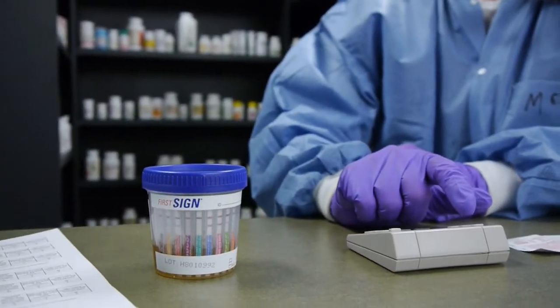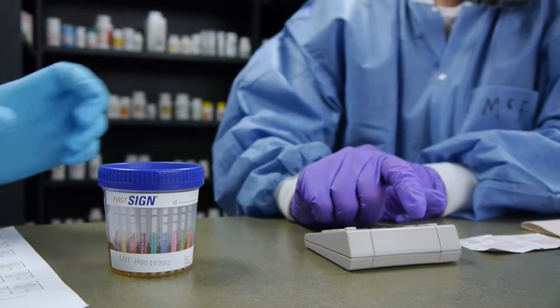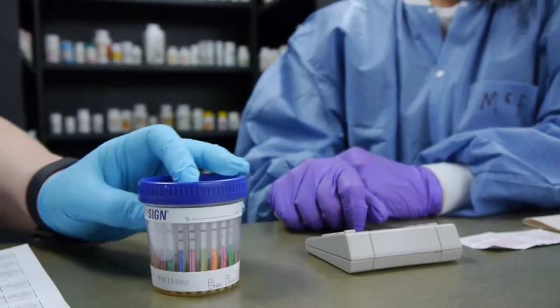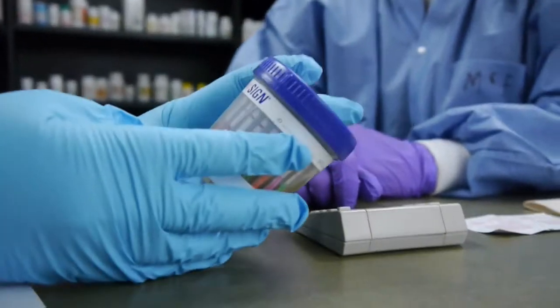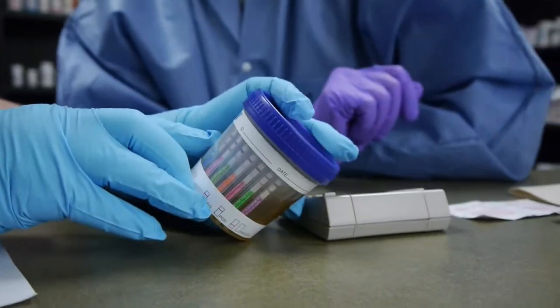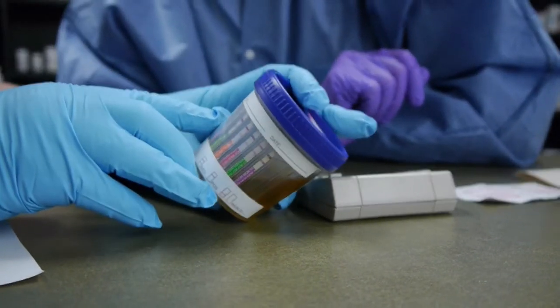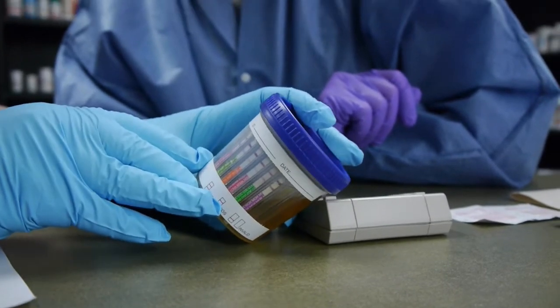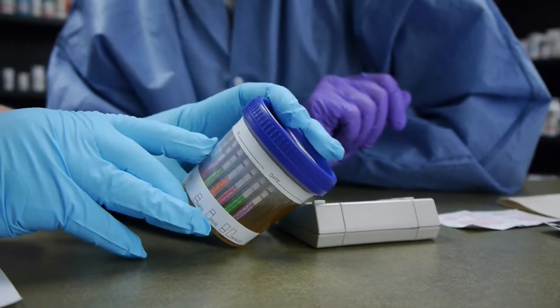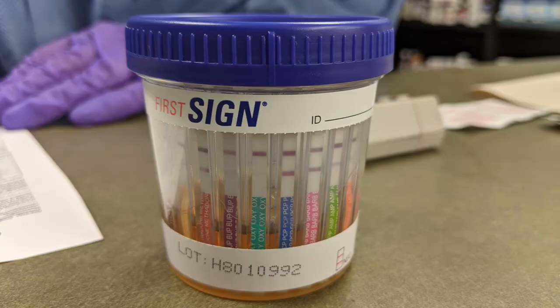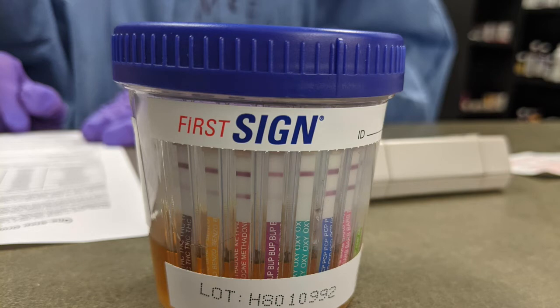Four, three, two, one. We have faint lines and that would still be a negative result. It's hard to tell, I don't know if you can see there's a very faint line. Notice how nice and negative many of those other ones are.